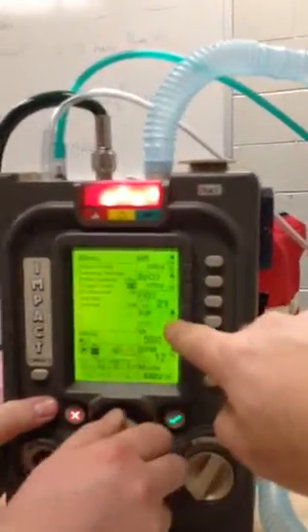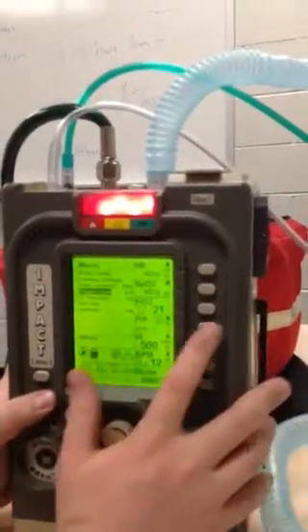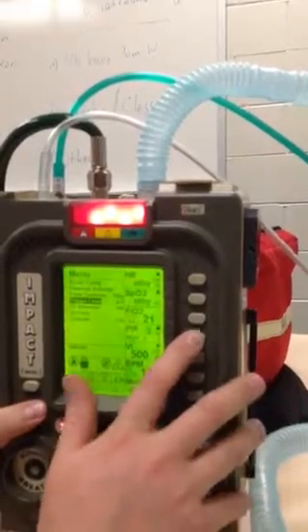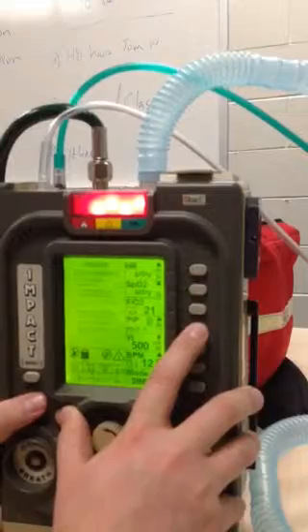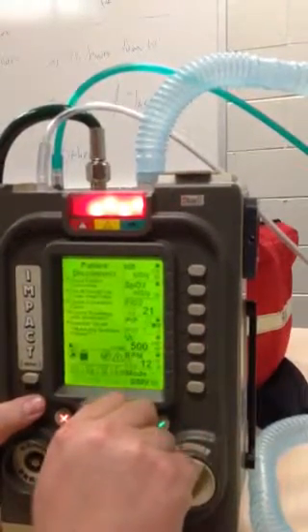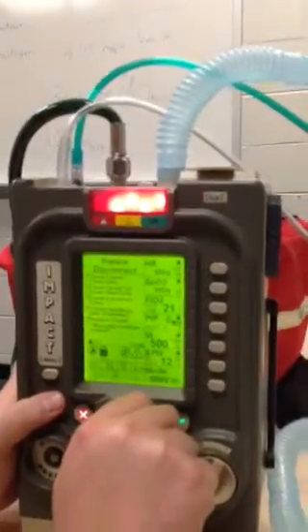All right. What about your PIP, if your patient's breathing? So if the patient is exhaling or not fully sedated, breathing a little bit on their own, you can change the peak inspiratory pressure alarm by scrolling to the top number and increasing it. The highest you can go is 60. Probably should leave it right around 45, 50.